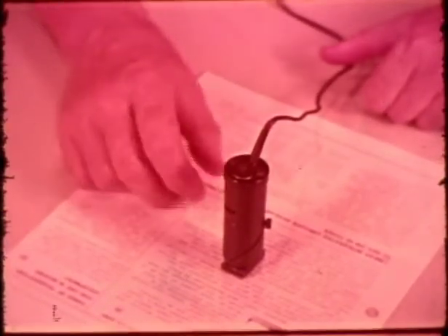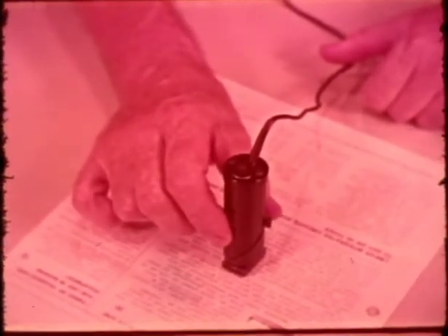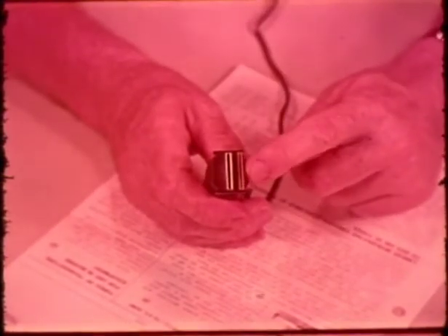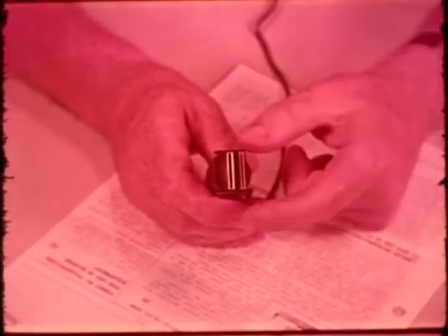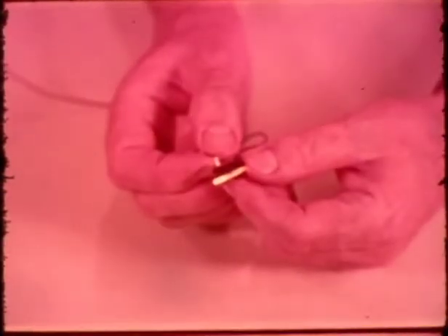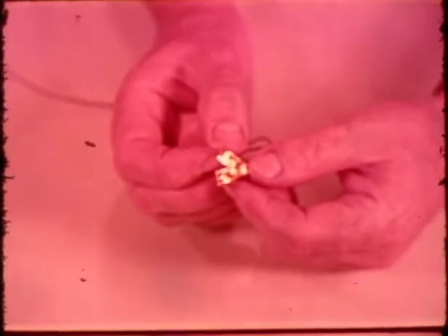The optical probe of the Stereo Toner is small, only seven-eighths of an inch in diameter and three and one-half inches high. It weighs just one and one-half ounces. A coated roller and its mounting bracket are attached to the probe base, and can be rotated to align the photocells with italic letters. Light produced by a miniature lamp inside a novel clamshell reflector is directed through a slit in the base onto the reading matter. The lamp uses a maximum power of three-tenths of a watt and is rated to operate for thousands of hours before a replacement is needed.